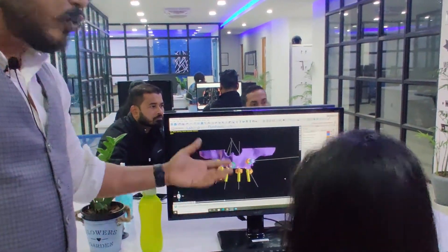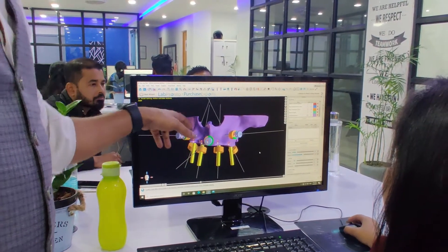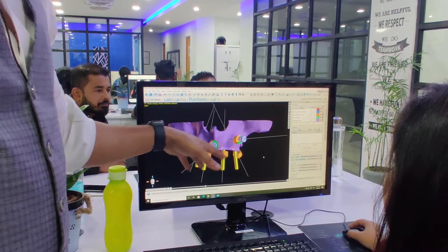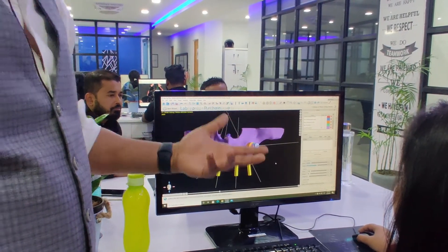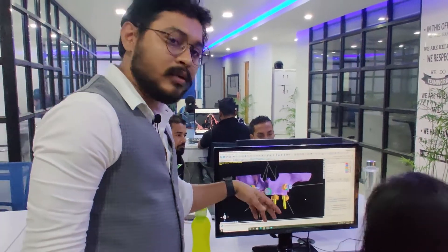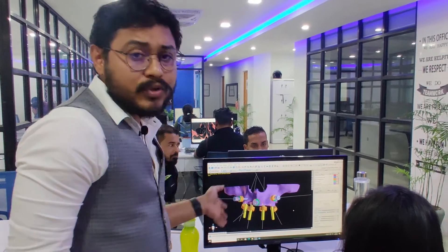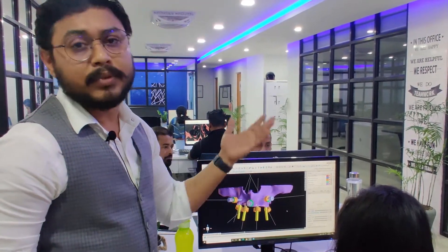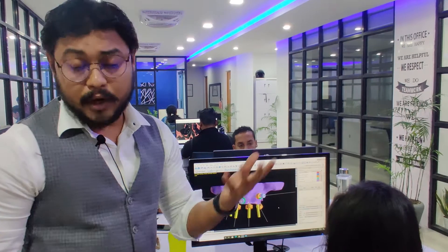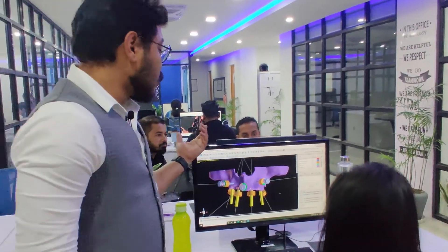If you are planning for a bone-supported guide or bone reduction guide, this is the bone model achieved from the bone segmentation process. If it is not accurate, your surgical guide will not be precise. Once segmentation is done, we use the bone model to create the osteotomy guide and bone reduction guide. The same procedure applies for 3D printing, zygomatic guided surgery planning, zygomatic surgical guide, and bone-supported surgery.